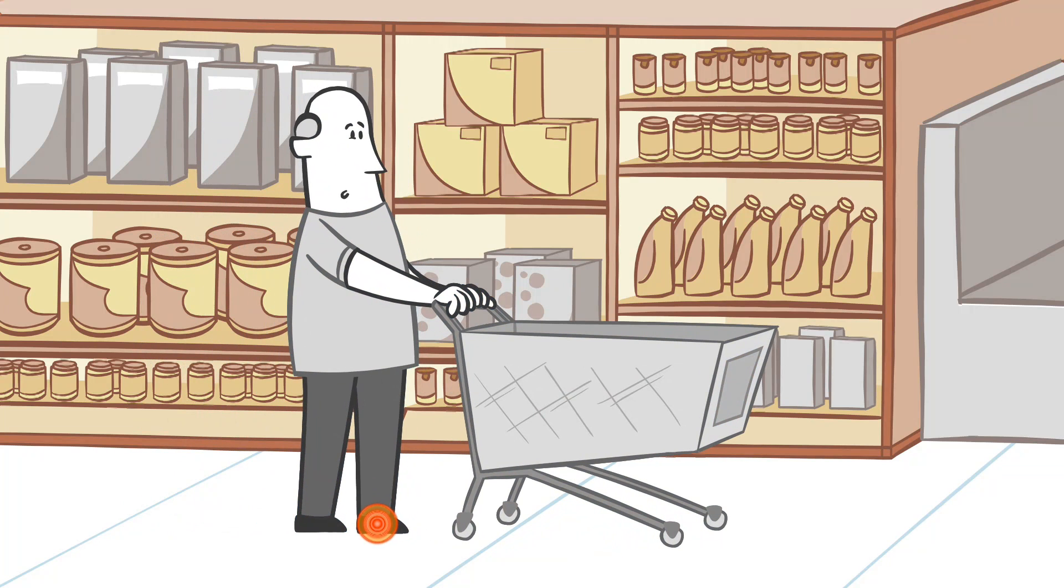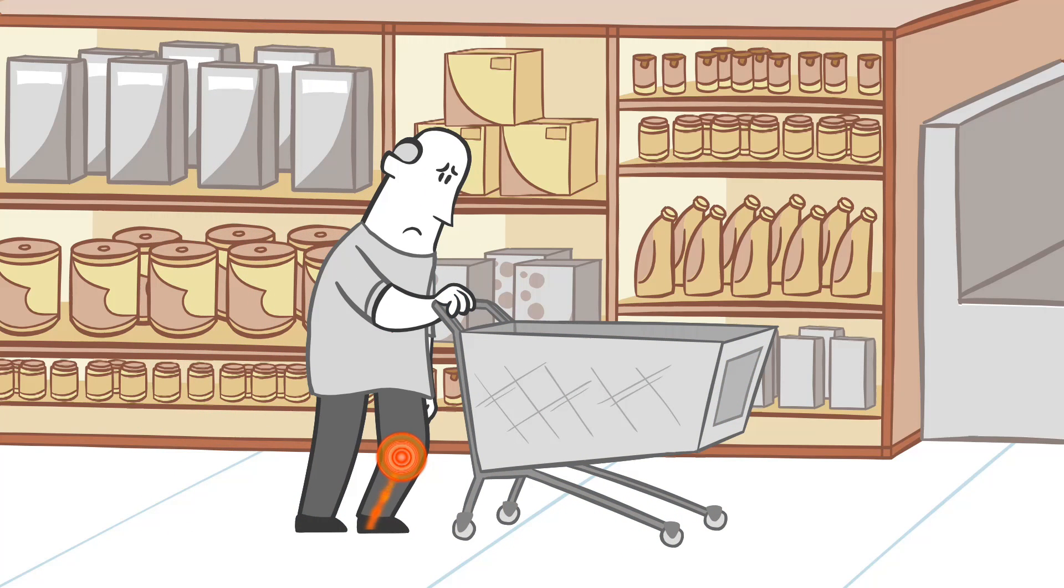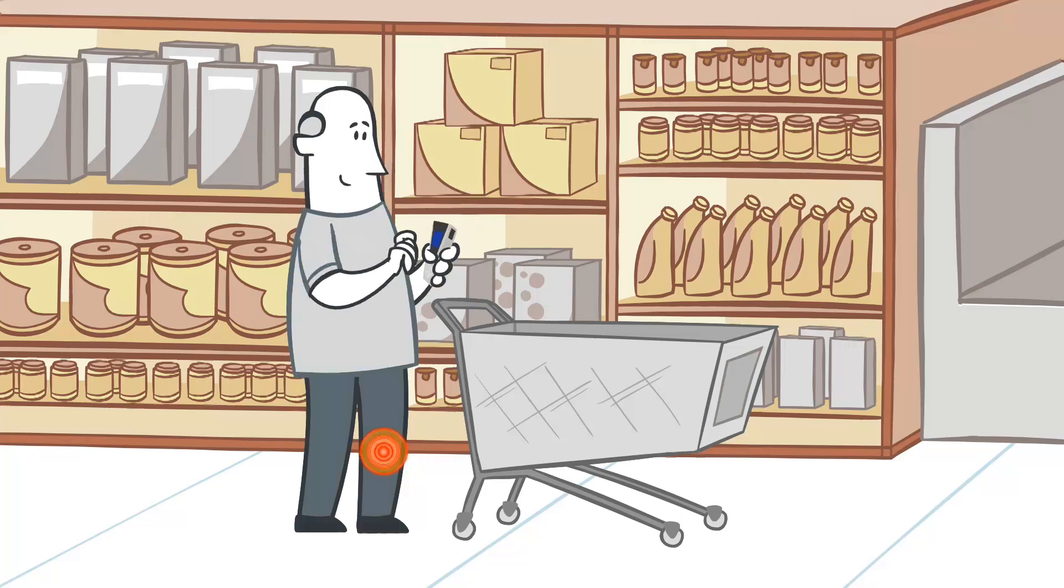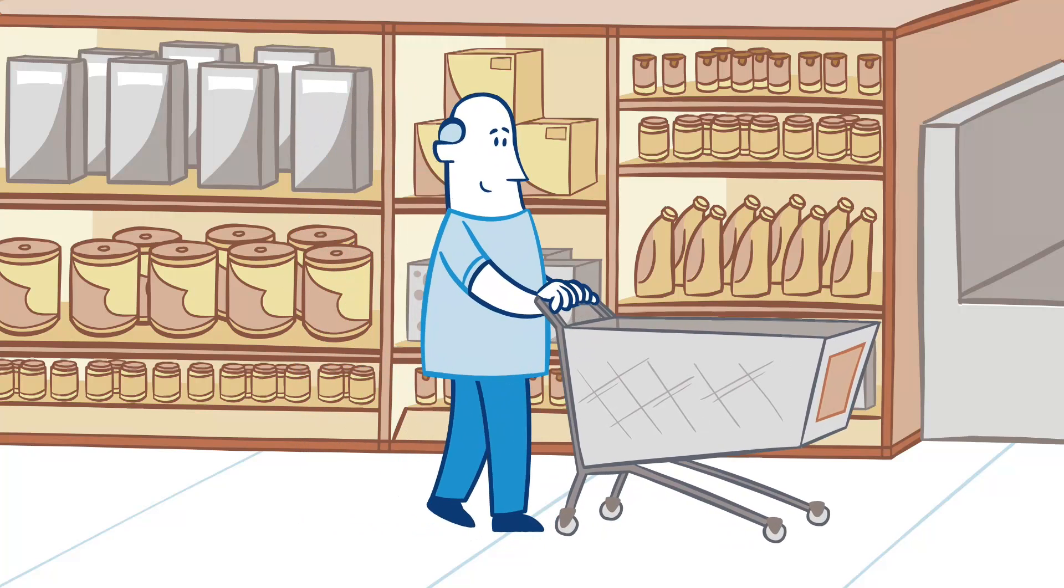In some cases, a cordless remote is available to help patients conveniently manage their pain. They can even trial the technique to make sure it suits their lifestyle.